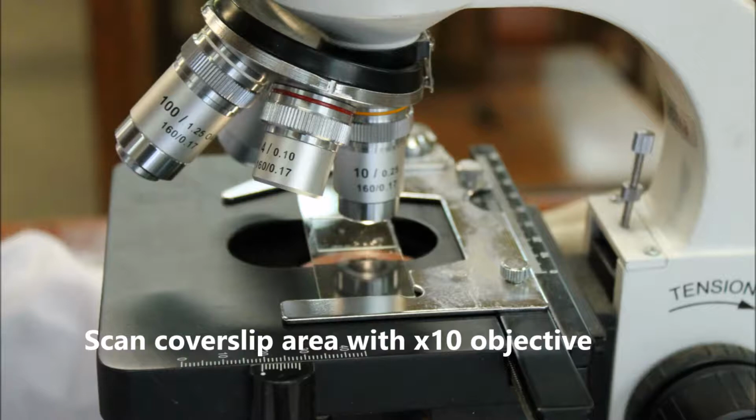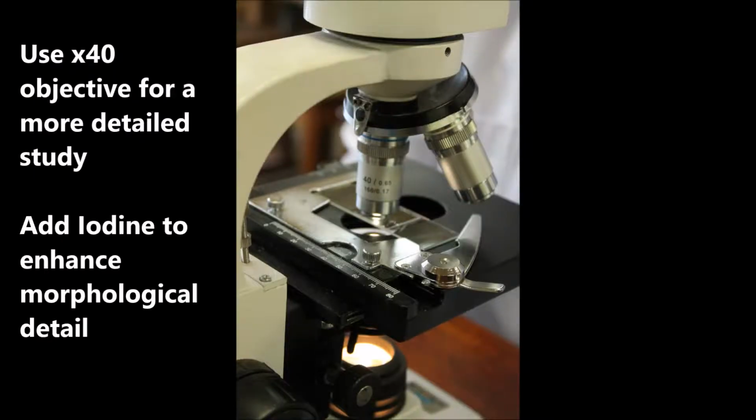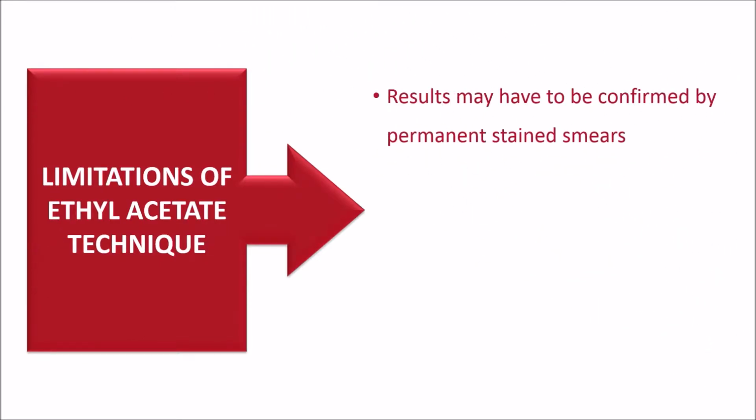Systematically scan the cover slip area with the 10 times objective and use 40 times objective if something suspicious is seen for more detailed study. You can make an iodine smear if you want to enhance morphological detail. Some limitations of the technique are shown on the screen.